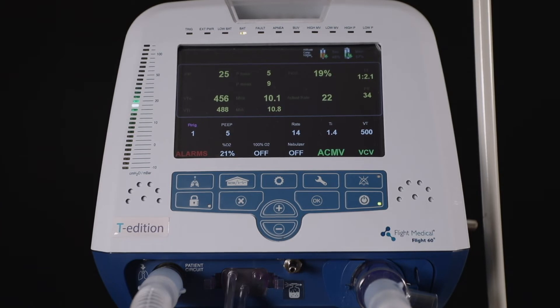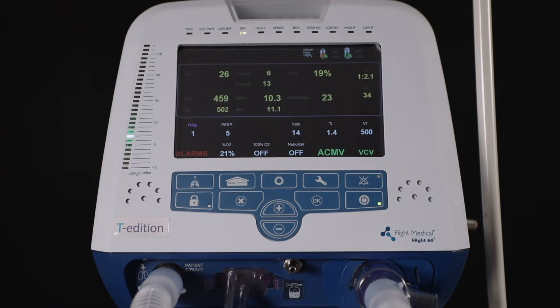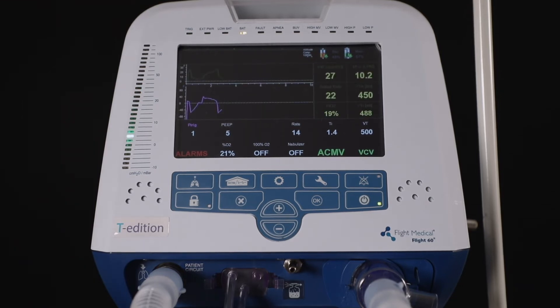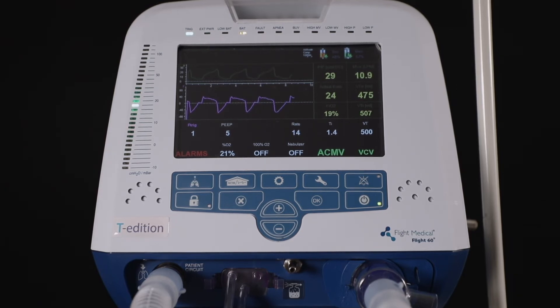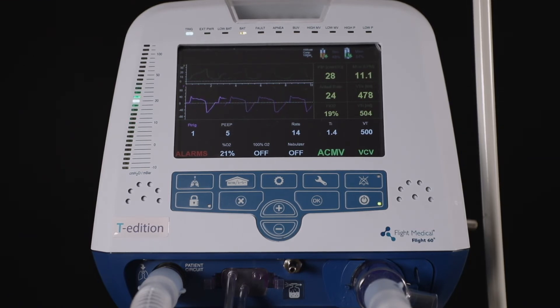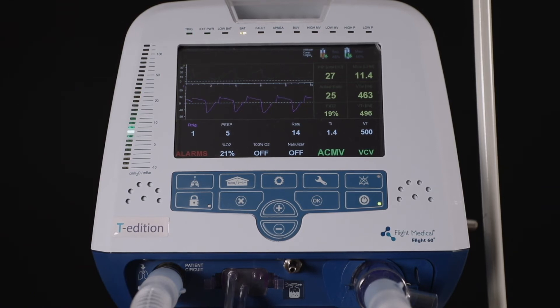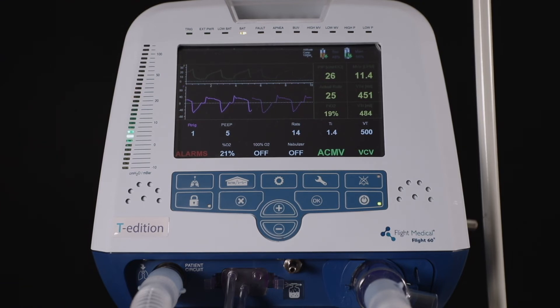Let's say at the 2-second mark the patient attempts a breath — what happens then? In ACMV mode, the patient merely attempts to trigger a breath and the ventilator will take over and deliver the full set tidal volume. Notice the delivered volume is the same as the other breaths where there was no patient trigger. This is what makes ACMV preferable for initial modes — it is ideal for muscle rest and recovery because the patient does not have to work hard to get a full volume breath; they just have to initiate or trigger a breath and the ventilator does the rest.